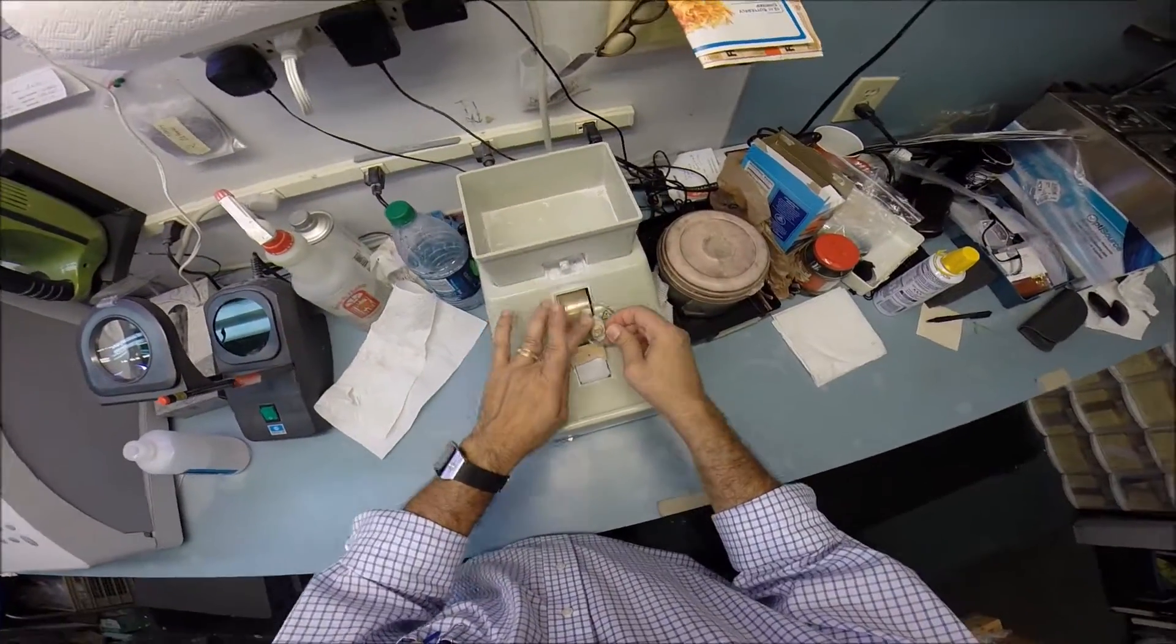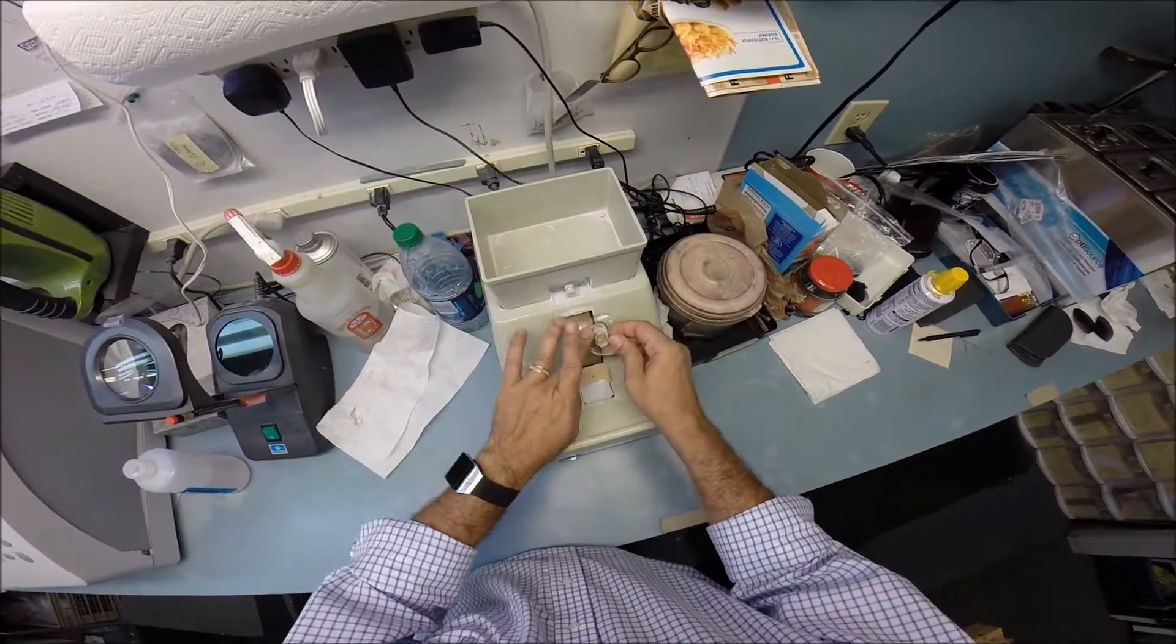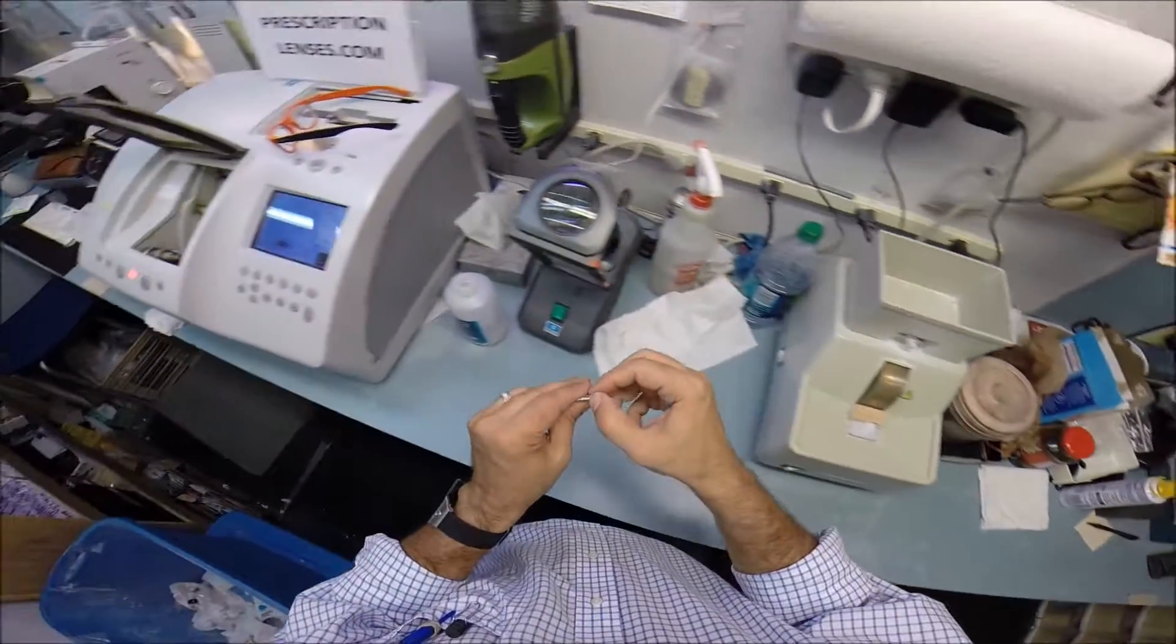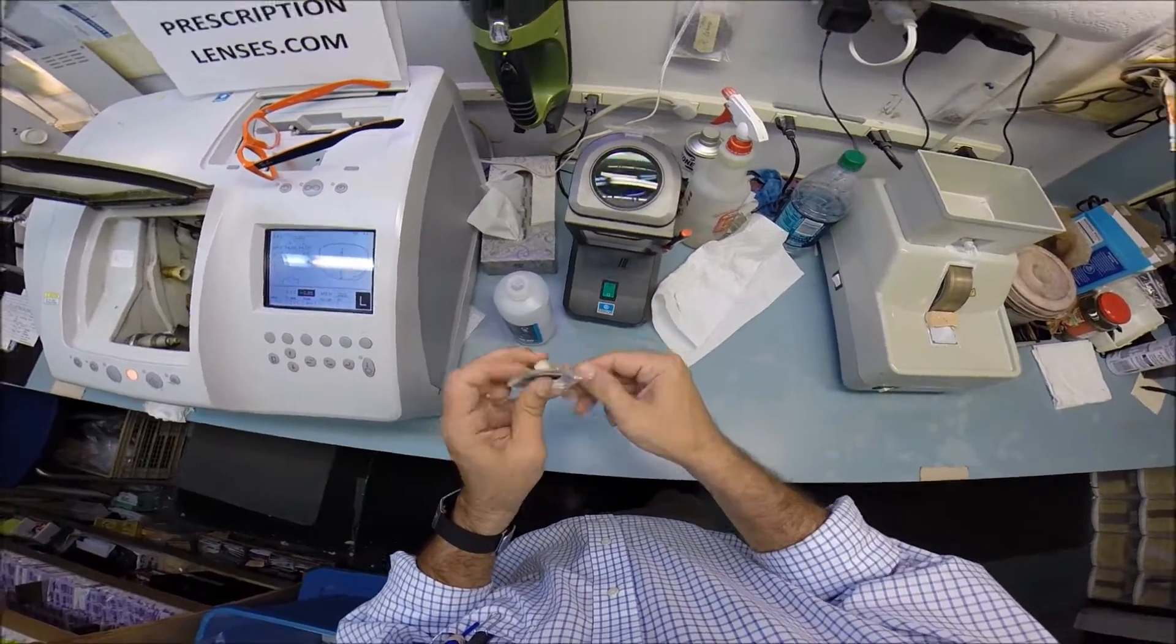Who's not trying to upsell you anything. In fact, I'm not trying to sell you anything. You buy the frame, and you get free prescription lenses. Thin, flat, free lenses. So, let me scrape this off.